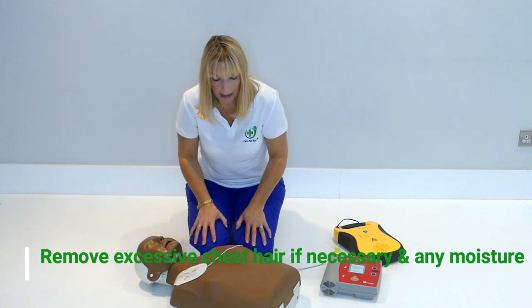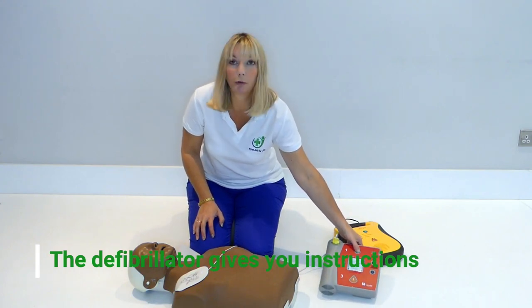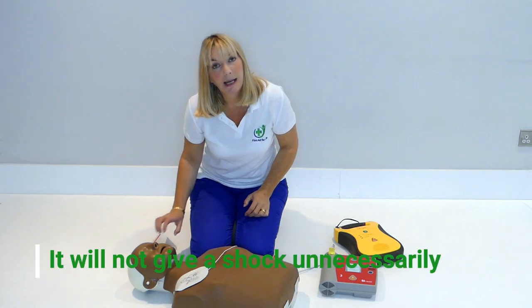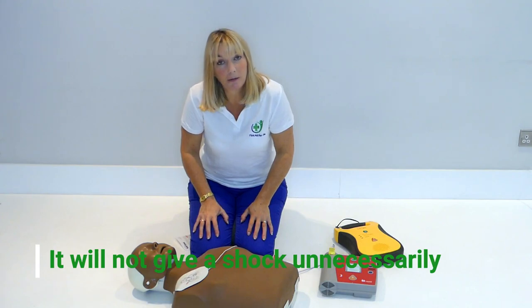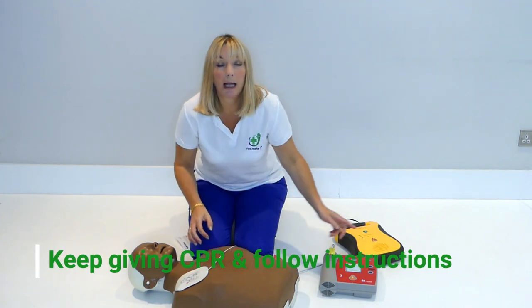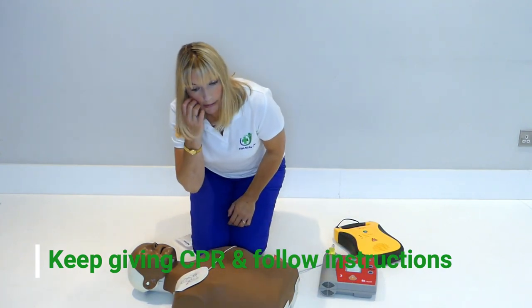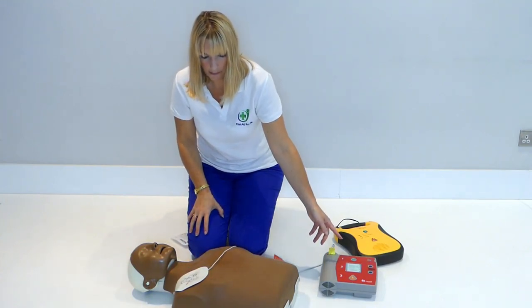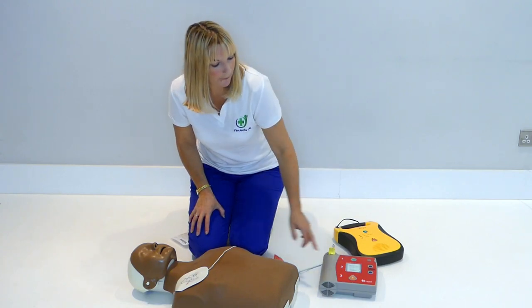The defibrillator will talk to you and you can only use it if they need it — so you can only use it if they're in a shockable rhythm, meaning you cannot do any harm. Keep doing CPR and follow the prompts on the machine. It will say 'analyzing heart rhythm, analyzing heart rhythm, do not touch the patient.' You follow those prompts.